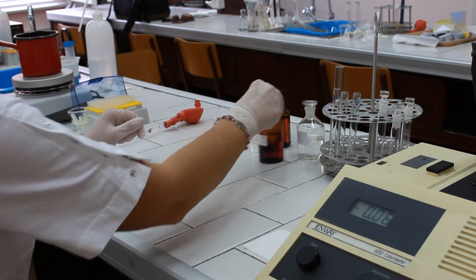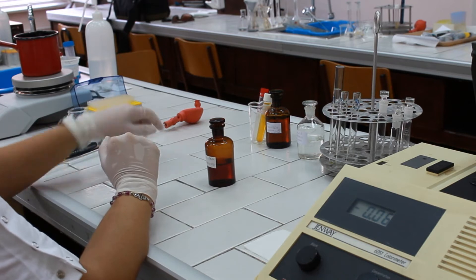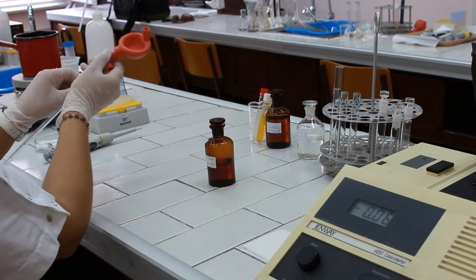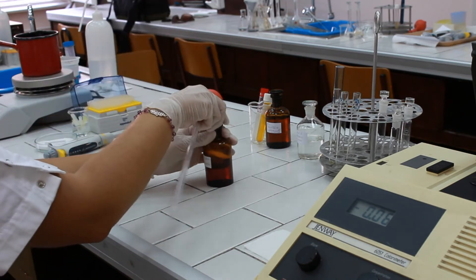Now we need to pipette GOD-PAP reagent — 3 milliliters into each test tube.